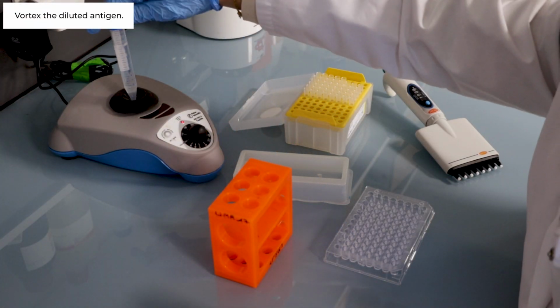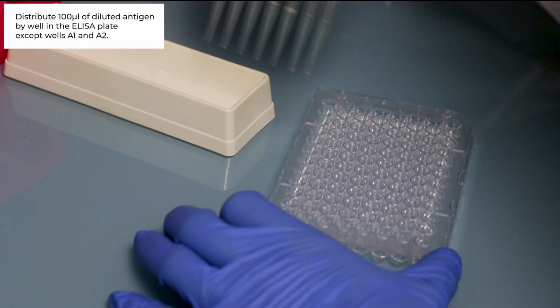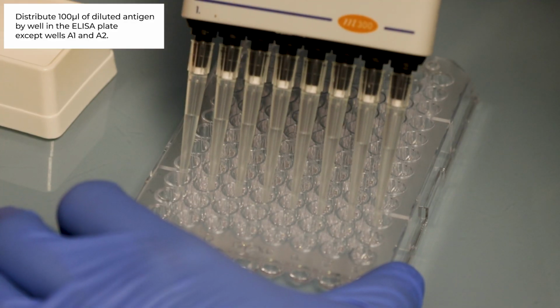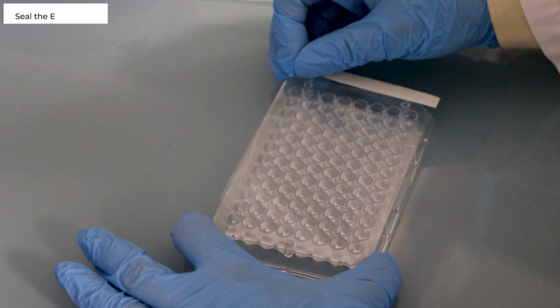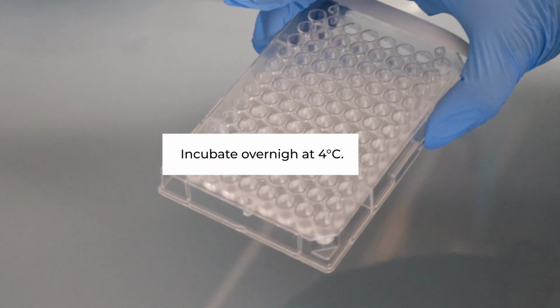Vortex the diluted antigen. Distribute 100 microliter of diluted antigen per well in the ELISA plate at the exception of wells A1, A2. Seal the ELISA plate and incubate overnight at 4 Celsius degrees.